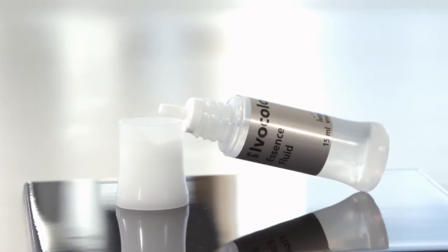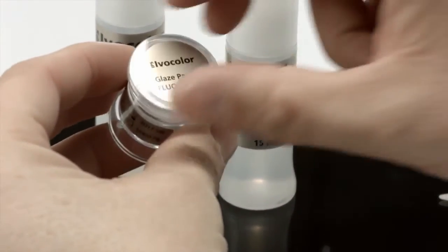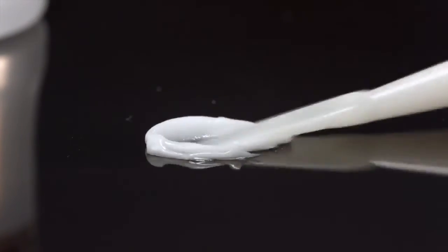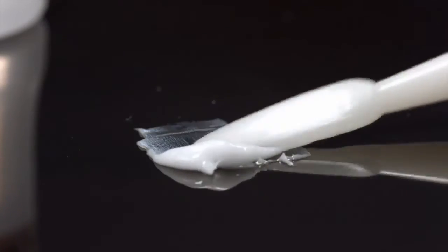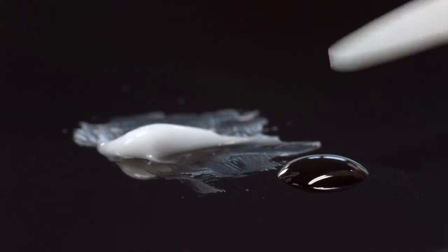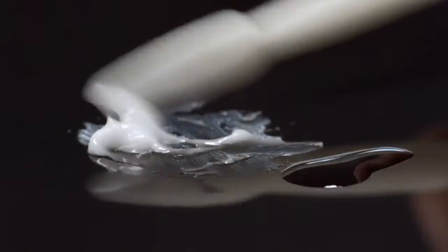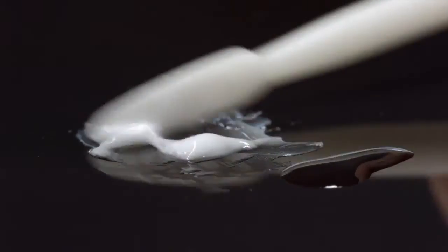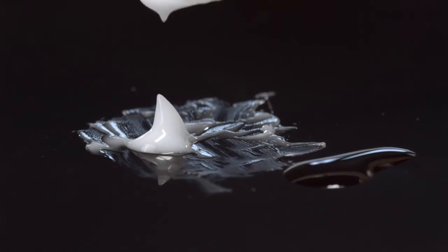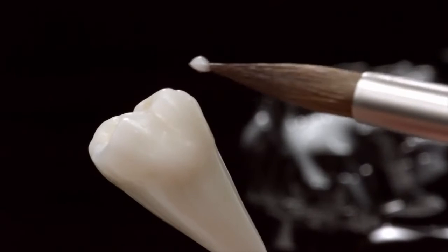Using Essence Fluid for glazes leads to gray discoloration. Here we will show you how to apply the glaze paste onto a monolithic crown as an example. Take the required amount of IPS Ivocolor Glaze Paste and mix it on a mixing plate with a metal-free spatula. Dip the spatula into some IPS Ivocolor Mixing Liquid, All Round or Long Life, and mix the paste with the liquid until the material has a homogenous, honey-like consistency. Using a clean brush, apply the glaze to the restoration in an even layer.